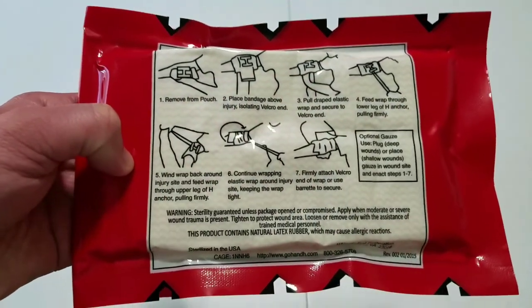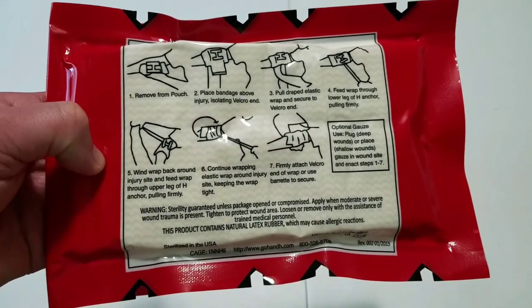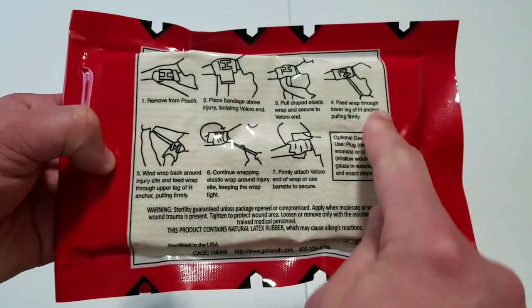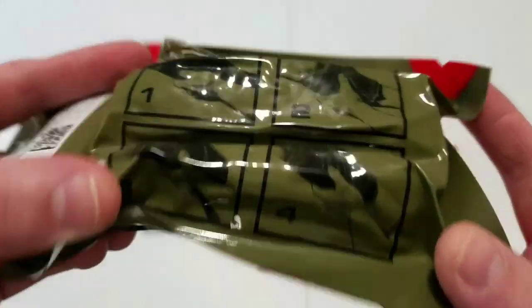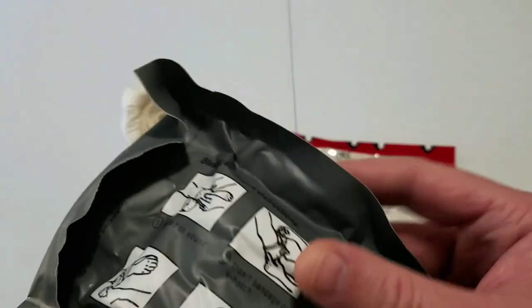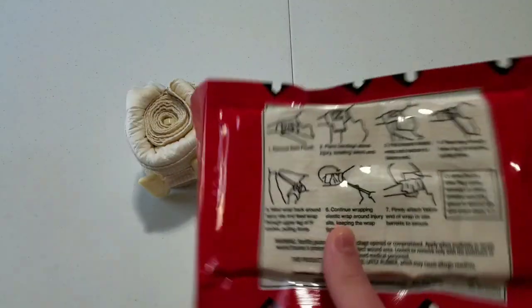This is a lot of stuff for someone in a bad situation who probably doesn't know what they are doing — especially because these are put in public access hemorrhage control points a lot. H&H Medical has a contract for those kits, so this is very apt to be used by a member of the general public with no medical training. By comparison, the North American Rescue ETD doesn't even have any writing — it is just pictures. The knockoff Israelis have pictures with a few simple words: Place on wound. Invert. Bandage across V. Tighten bandage over notch. The H Bandage instructions are literally a book.